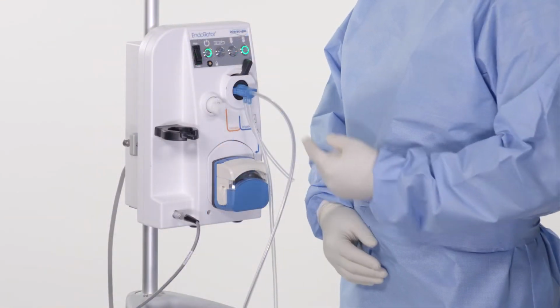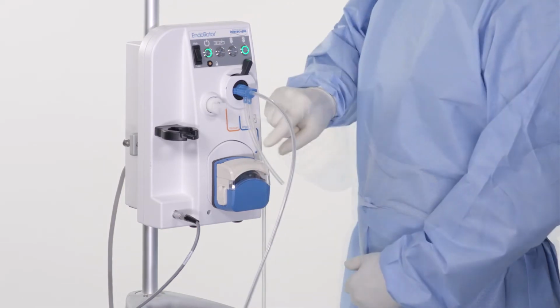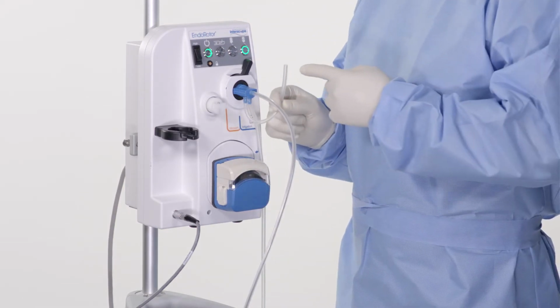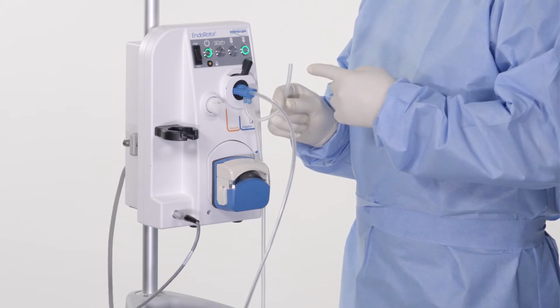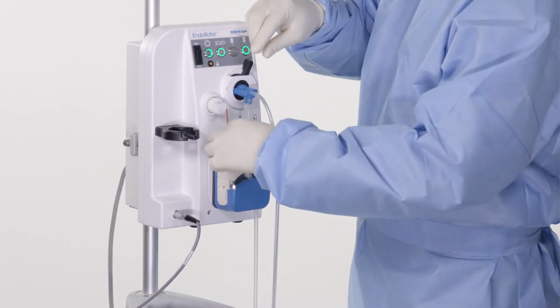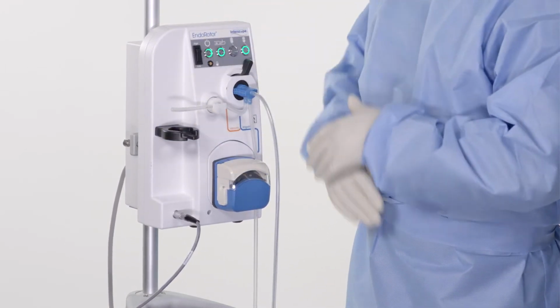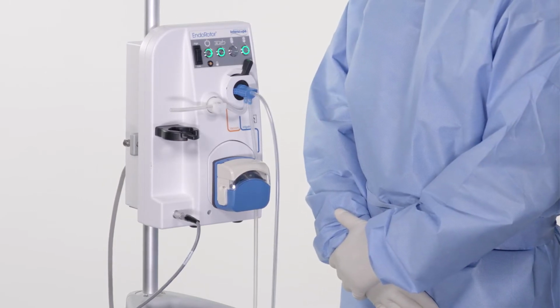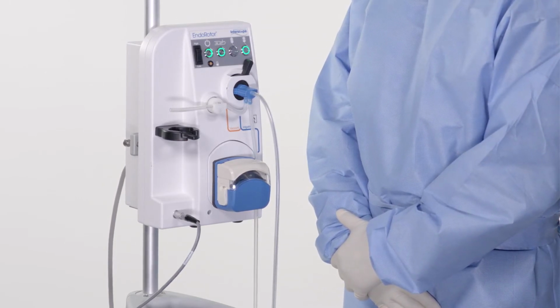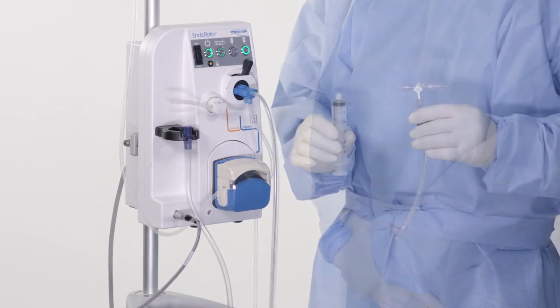On bottom surface of proximal housing are two connected tubing sets. The shorter of the two tubes is the purge kit connection to the vacuum tube. To load, press vacuum release button. Stretch tube and place into vacuum release valve until seated. Take care when stretching the tubing to ensure your right hand does not hit the catheter housing with force. Hitting the housing with force may damage the catheter.